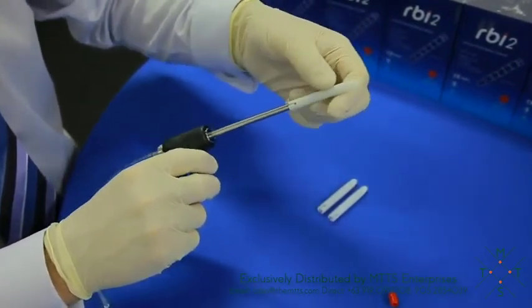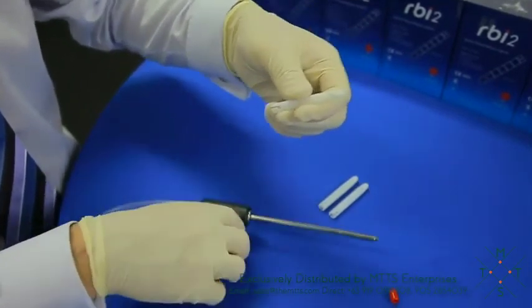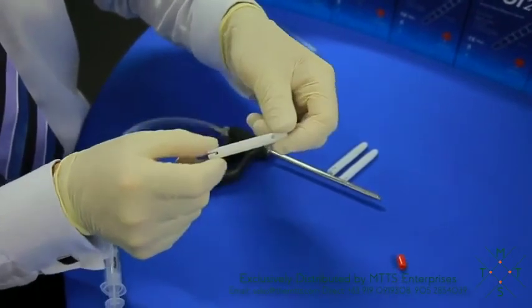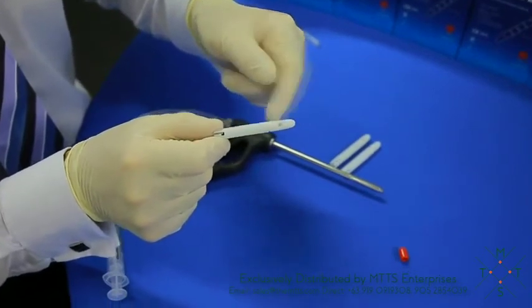So once you're happy that the blade has gone all the way through and you can't see any part, you'll simply remove the capsule from the device, the handpiece. And then you'll notice that the first one centimeter increment is a controlled fracture point.